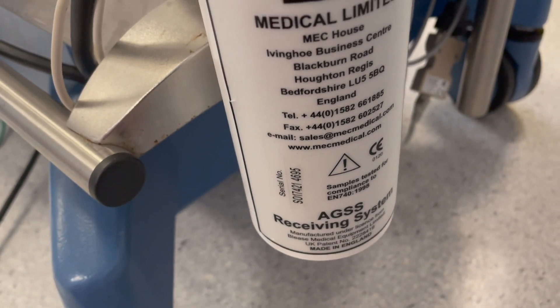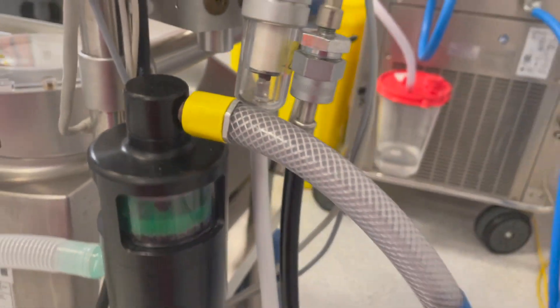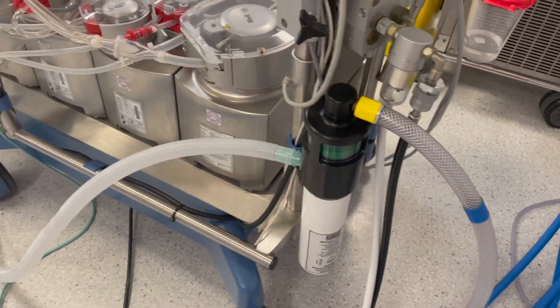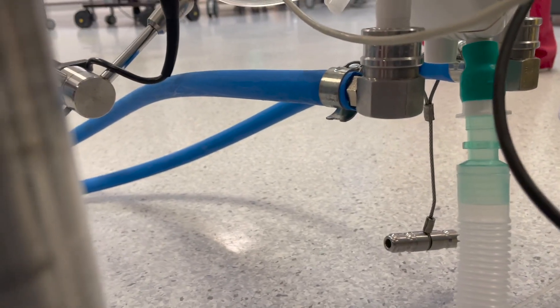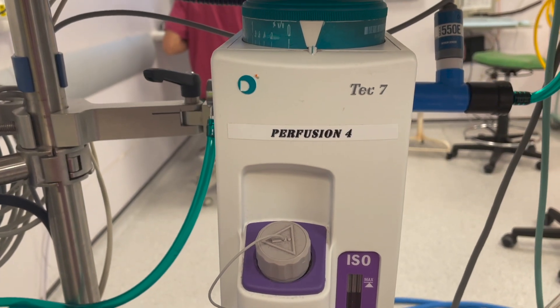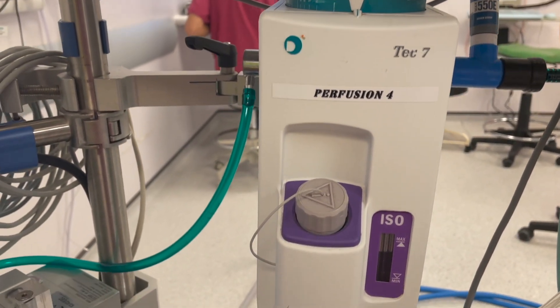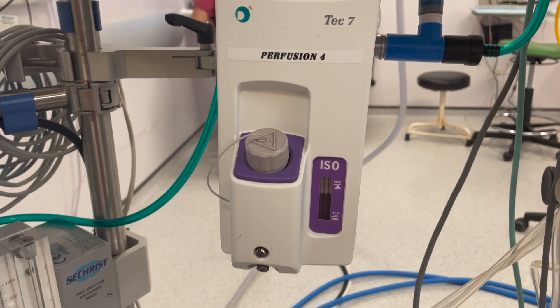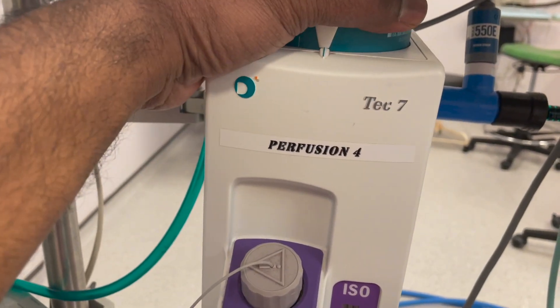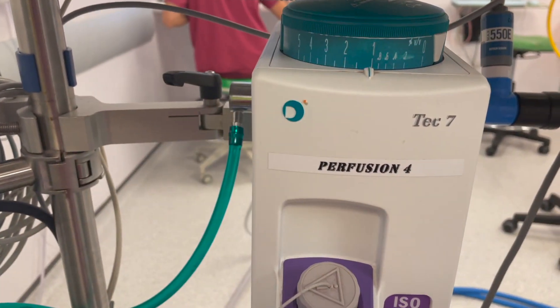However, care needs to be taken with such a system. If excessive negative pressures are generated by the scavenging system, this can produce a negative pressure gradient across the membrane. Care should be taken to position the vaporizer on the cardiopulmonary bypass machine where it is clearly visible, so that its filling level can be observed to ensure it contains sufficient anesthetic agent. The level of the anesthetic agent within the vaporizer needs to be monitored throughout the case.